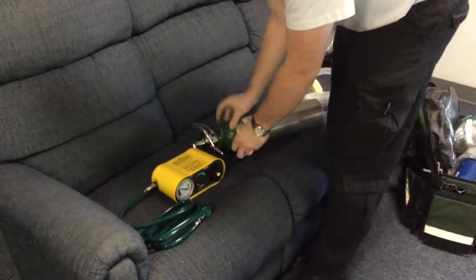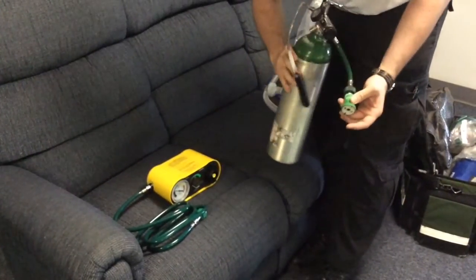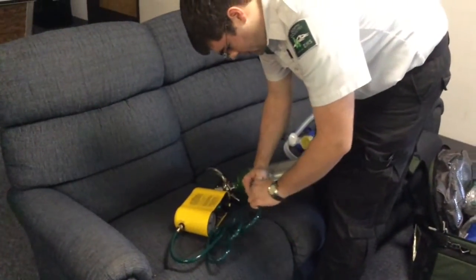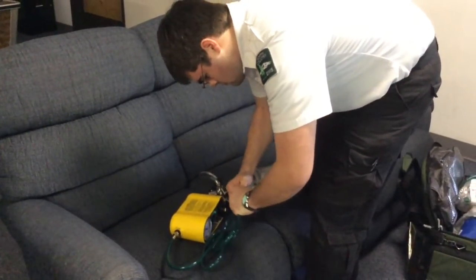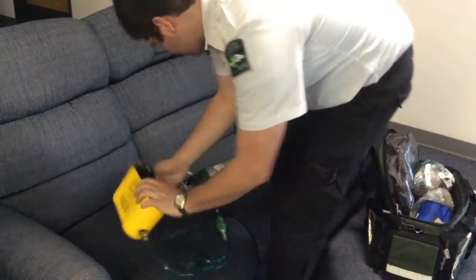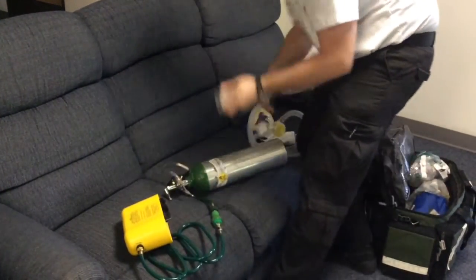The quick connect on the bottle is the same as the wall connect on the ambulance — they plug in together. The CPAP now has air to it. Reassemble the rest of the CPAP.